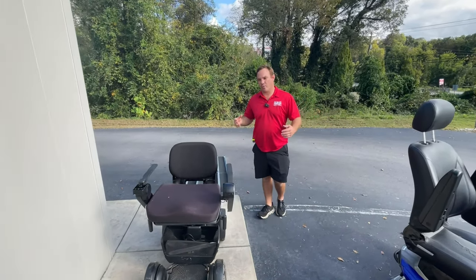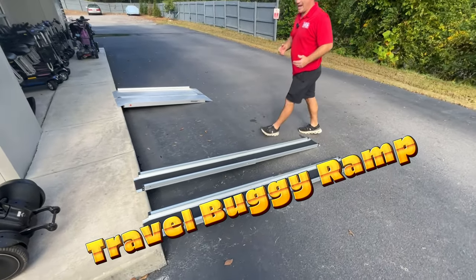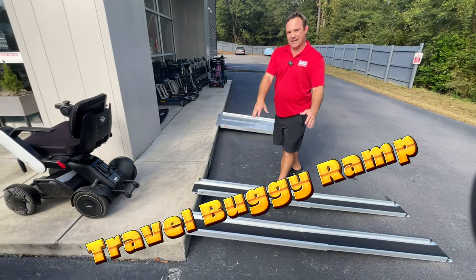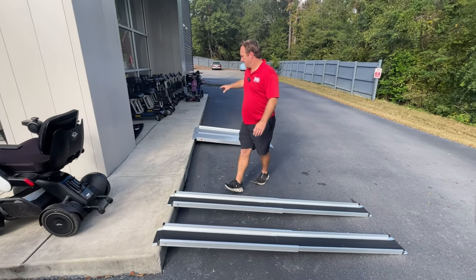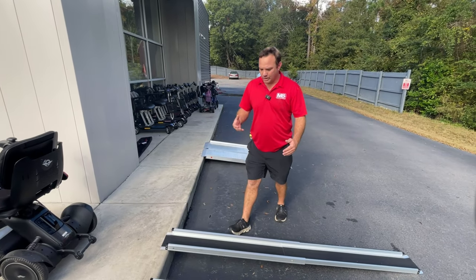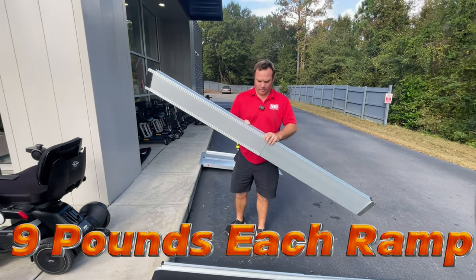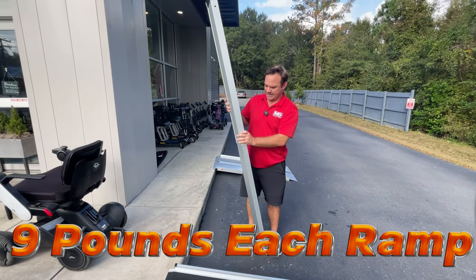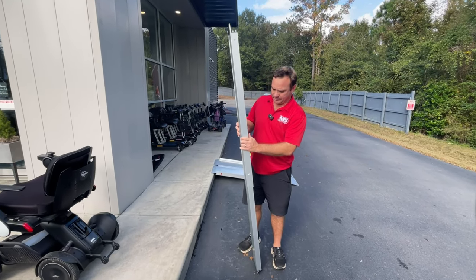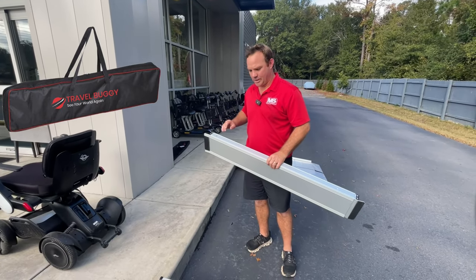When you're looking for a portable ramp to get into your car, or if you're traveling to someone's house — this is a telescoping ramp. This is a bi-fold ramp. This telescoping ramp is really easy and nice to take places. It's super, super light. You can press this in, slide it up, and there's a cover for it.